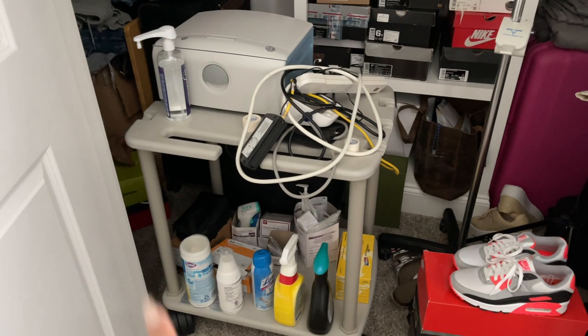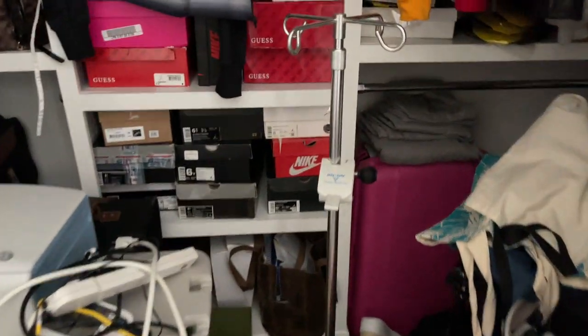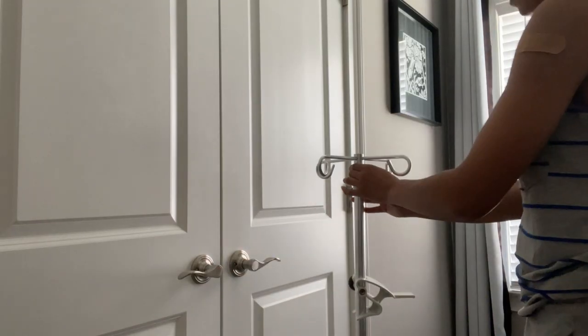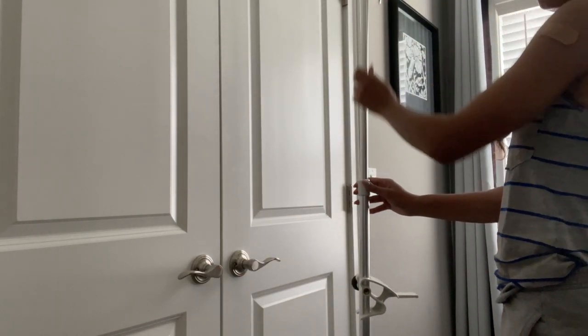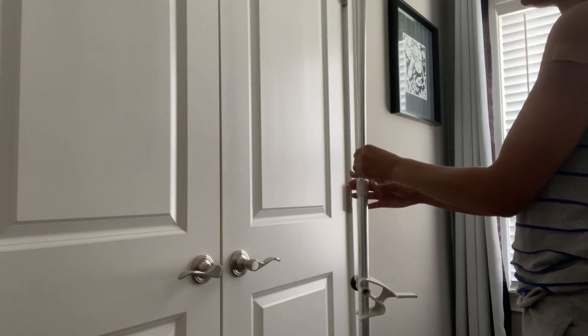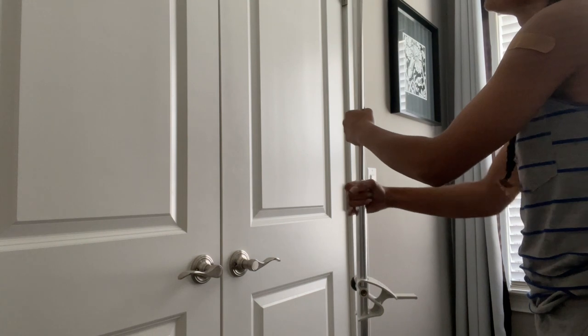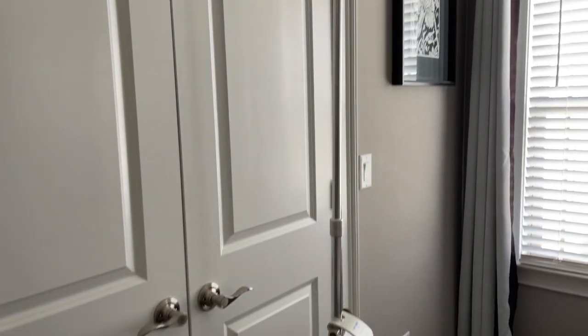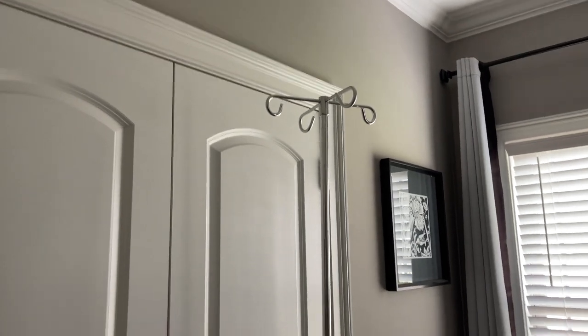This is my room closet where I keep my daily dialysis equipment and my manual dialysis pole. Here I'm just raising my dialysis pole to my desired height. Remember, when it comes to manual dialysis it works on gravity alone — it does not need to be hooked up to a power source. As you can see, I raise it to about the height of my closet door.